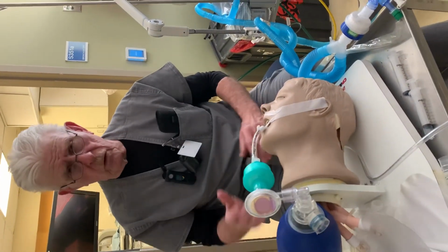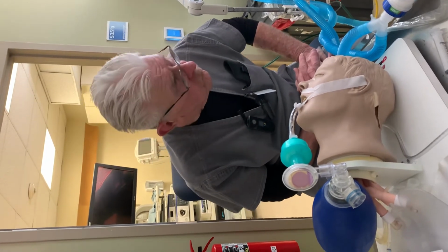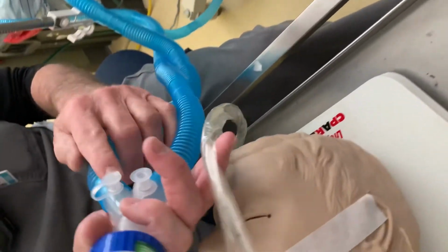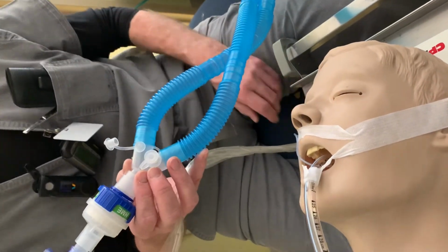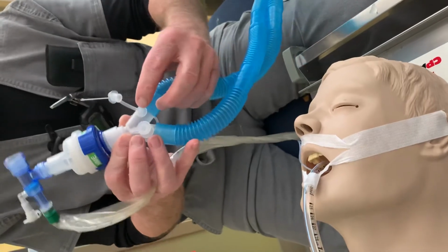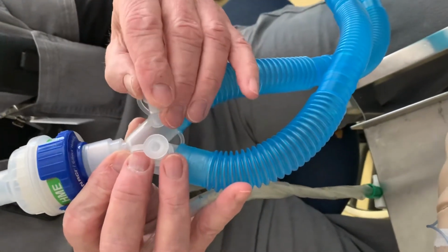Okay, so any questions? Yes, young lady? What if one of those little things pops off? What happens? Well, you'll certainly hear air escaping from the ventilator, and you'll probably get an alarm. But what will also happen here, in the delivery system, is there would be a line that we would connect with certain devices to monitor the pressures here. There should be a cap on this.